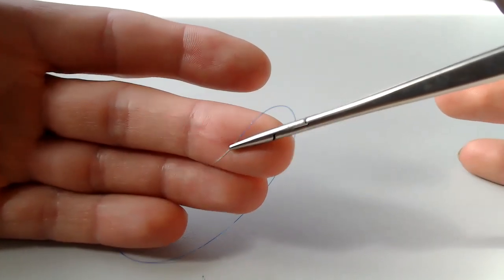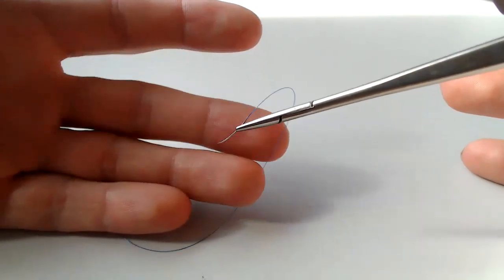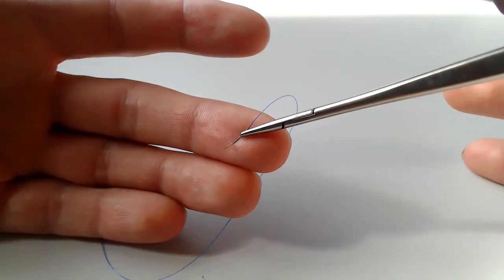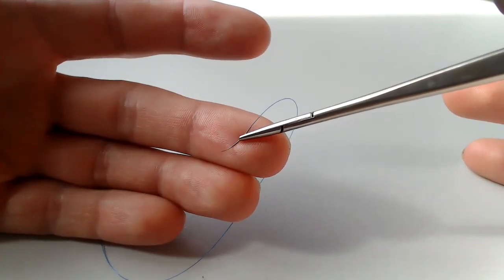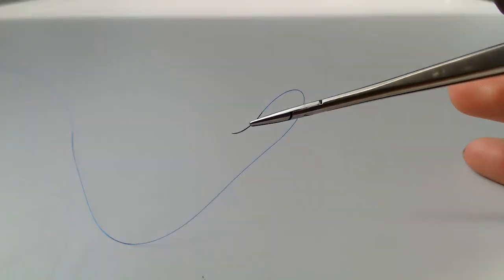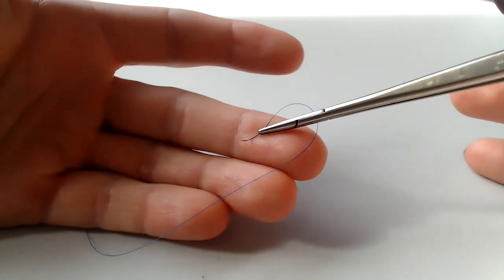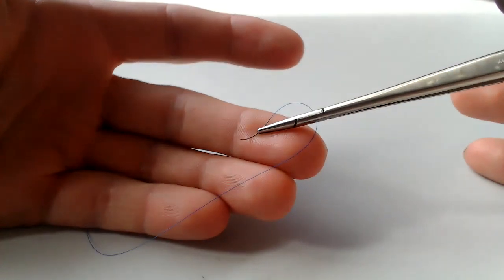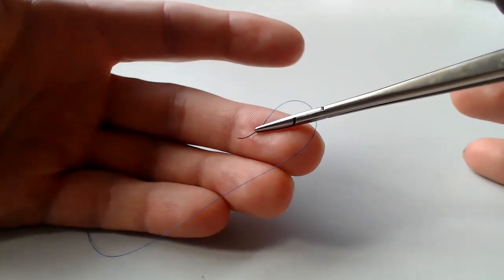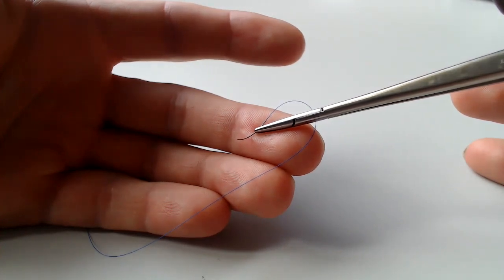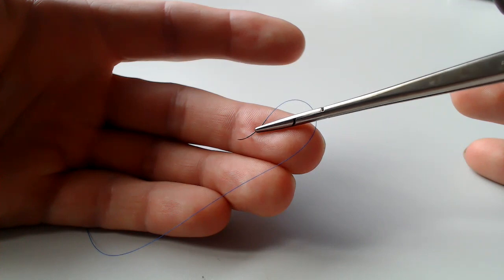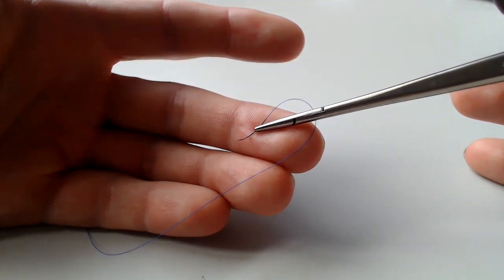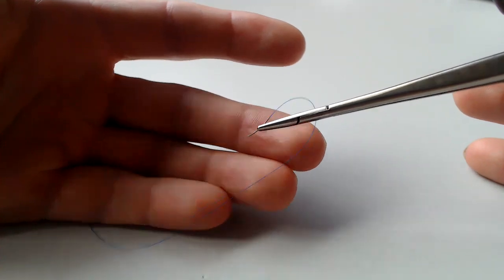And again, this is like selecting your, I'm not a golfer, but it seems like when they're on TV, what golfers do, they're kind of choosing the club, they're looking at the green and they're choosing their club based on what the exact angle, height, grass blade height, all the different variables in the green and whatever's going to get them in the hole. They're being very precise in their setup. You should be too.